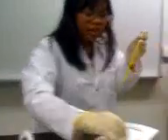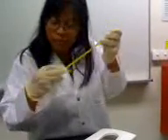Now, that will be your temperature. And then you go somewhere to the basin and start washing the bulb of the thermometer. Make sure it's clean. Then you take some tissue paper and you wipe the thermometer.